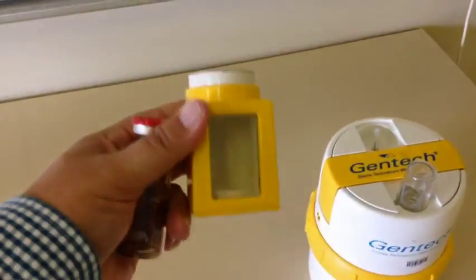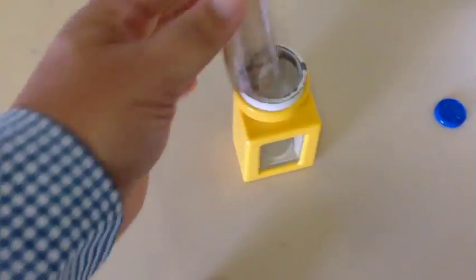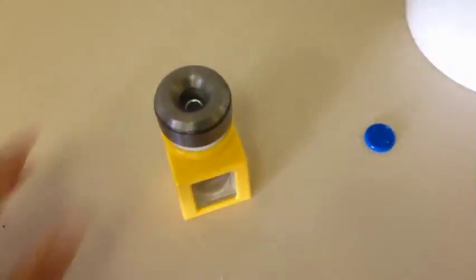So this is the elution pot that would go with that. It does have a little glass window, and so you would normally pop the top of our evacuated vial, you would screw the top on, and that whole system would go upside down on the needle.